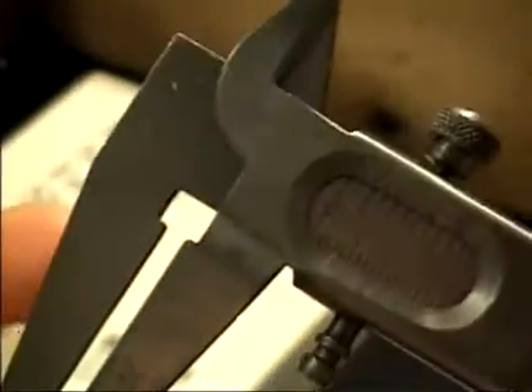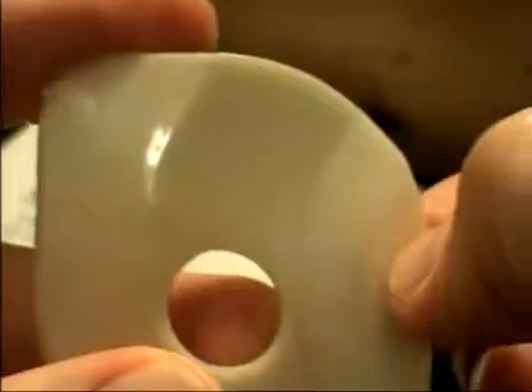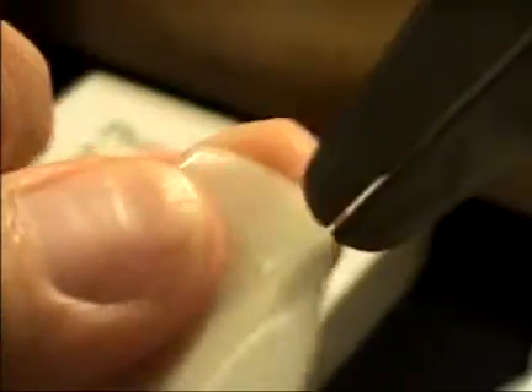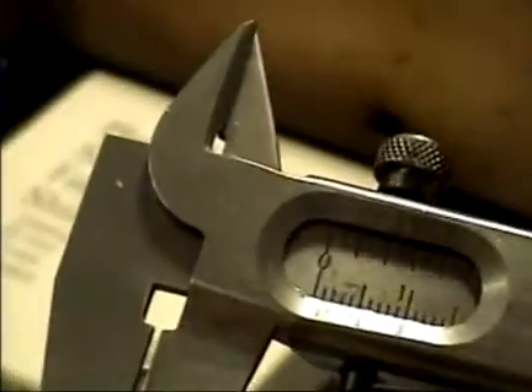Not being able to analyze the polymers, I thought I'd check the physical dimensions of the ones that work and compare them to the ones that don't. Using a caliper with a millimeter scale, I measured four different zones of the face shield to see how thick the plastic is, and also how thick it is at the rim where it clips onto the metal clip of the Phoropter. The ones that work are nearly one millimeter thick at each of these zones.